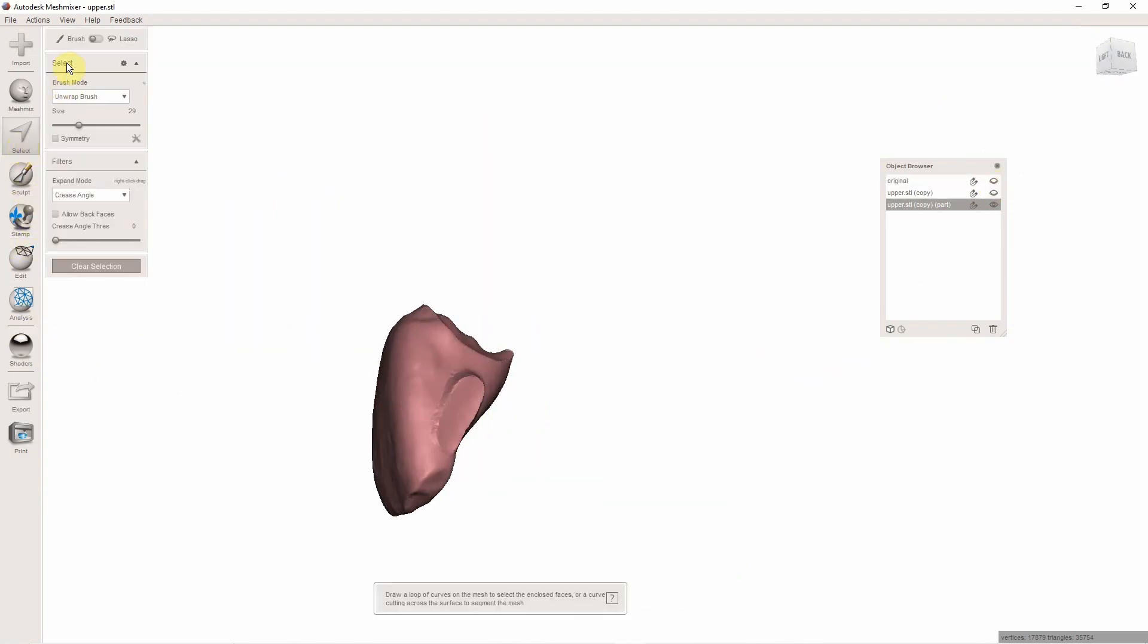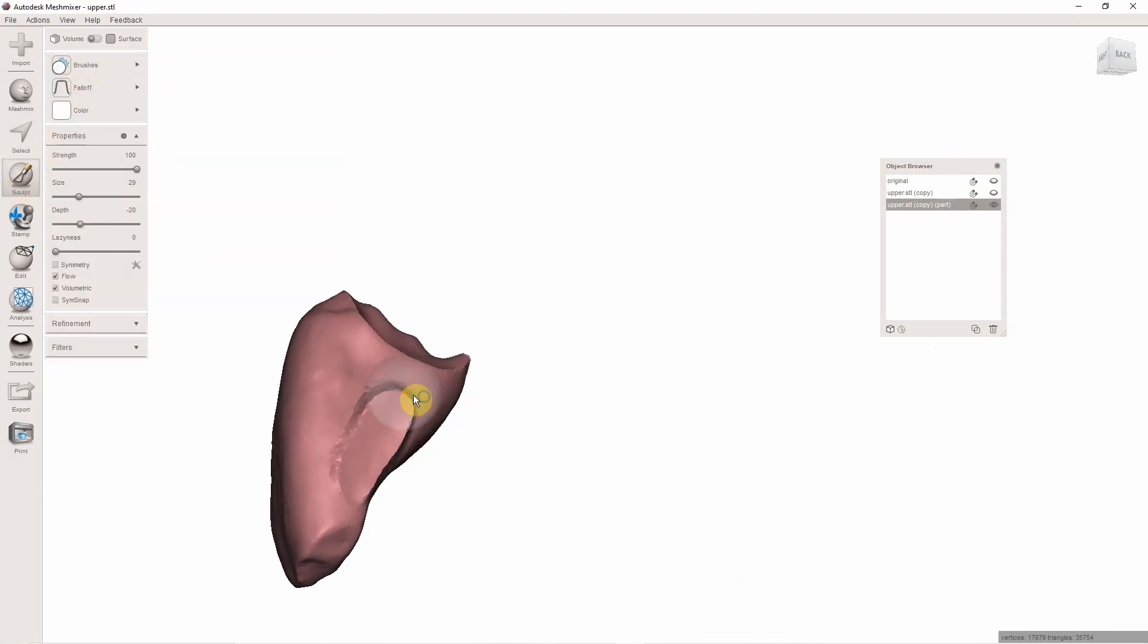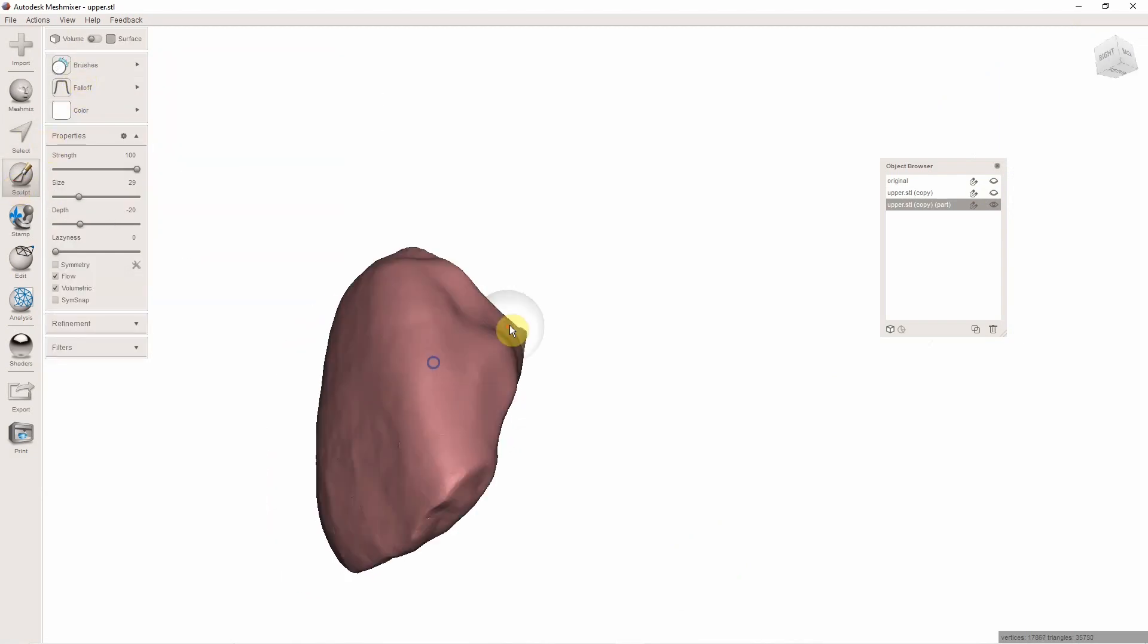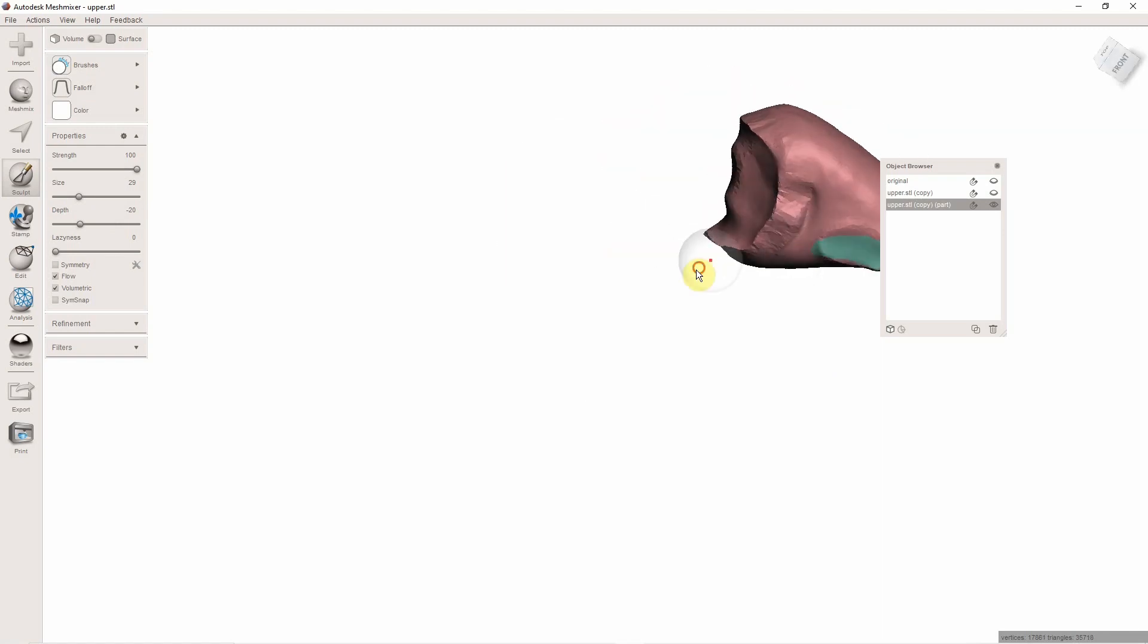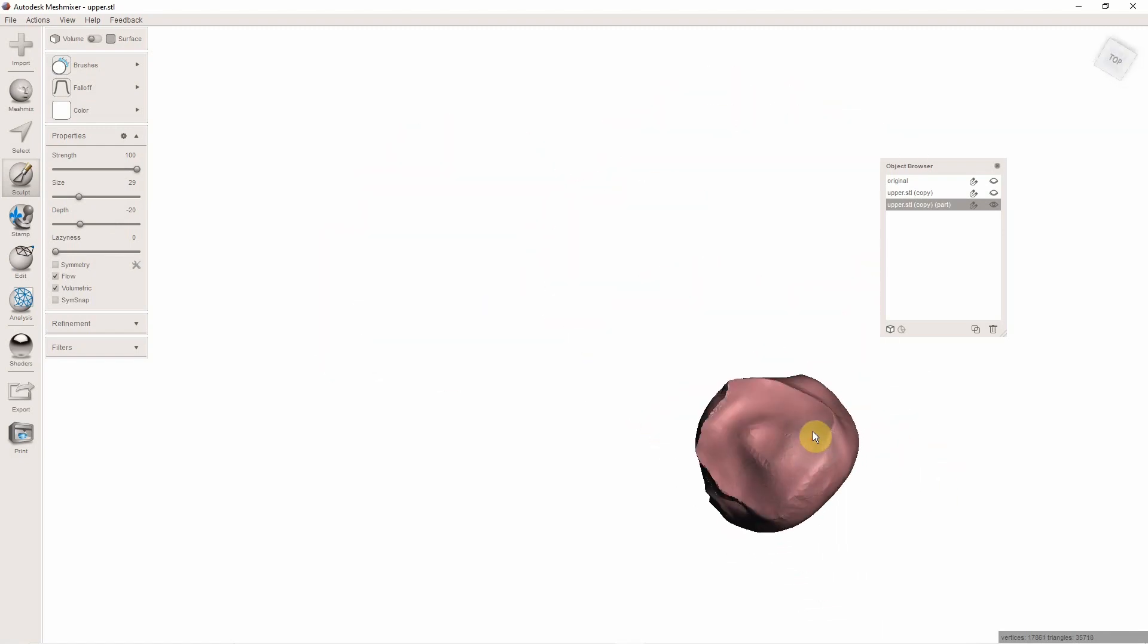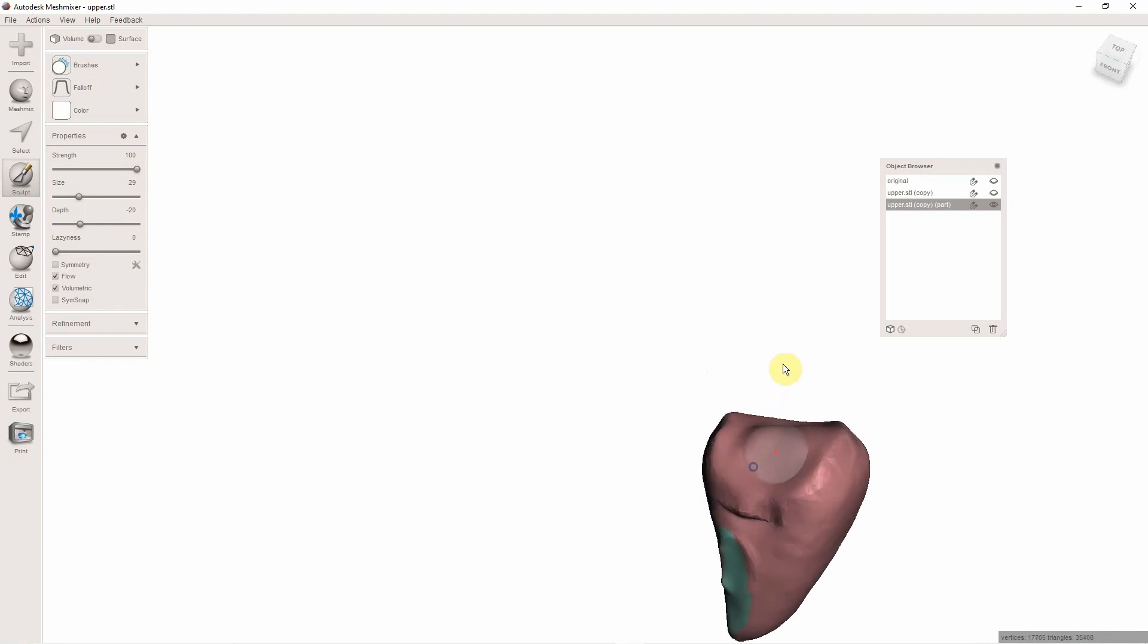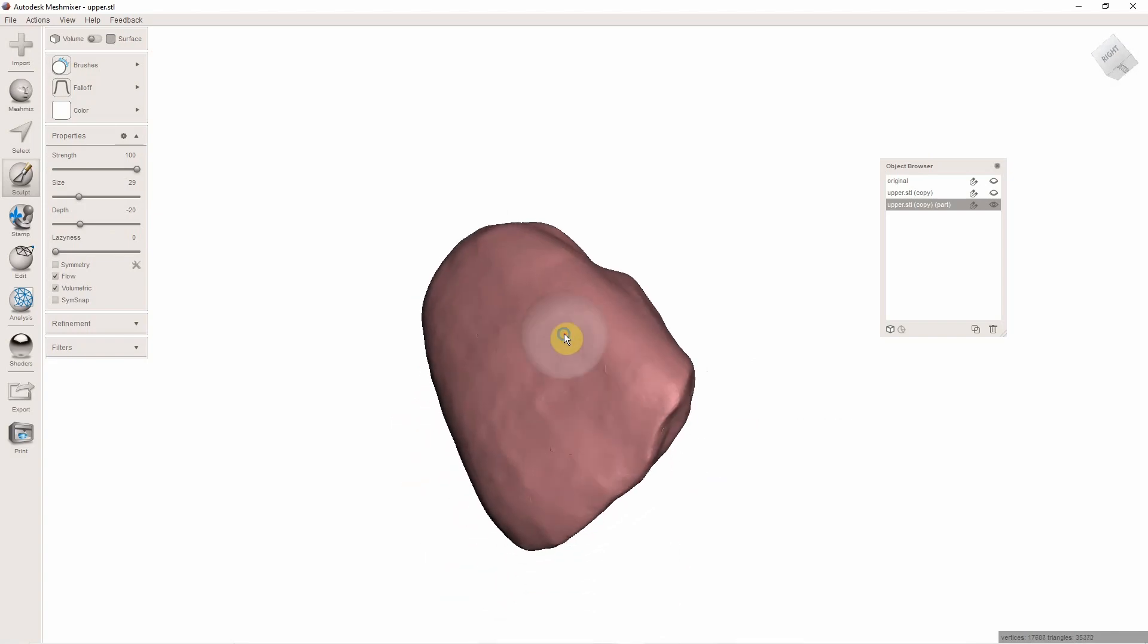And I'm going to go ahead now and turn that off because it's annoying. And you can see what it did - it made tissue pressure here, proximal contact there and there. Now what I'm going to do is remove that original model and just smooth this up. So I'm going to go to Sculpt, Brushes, Robust Smooth, just kind of smooth that a smidgen right there. And you could make ovate pontic site, you could make modified ridge lap, whatever you want to do here.